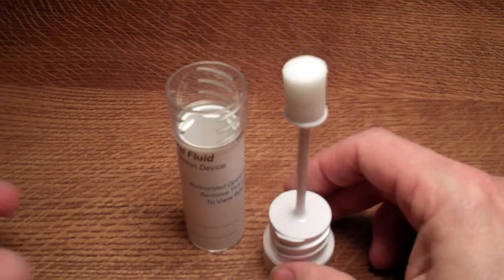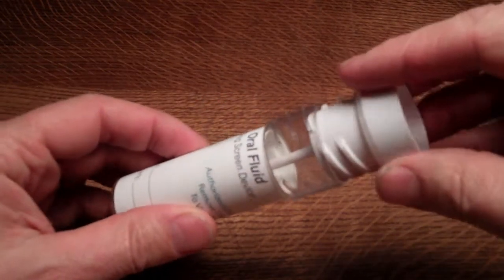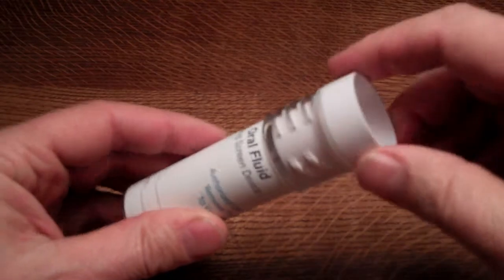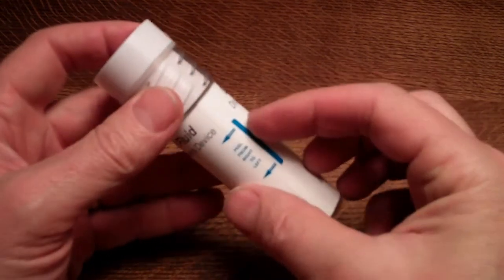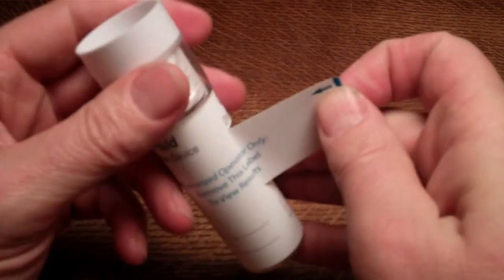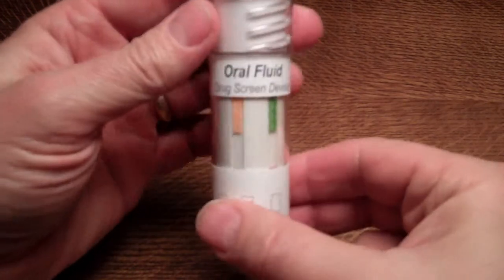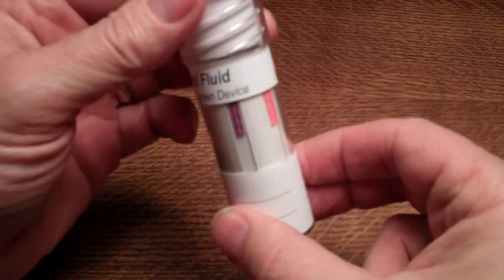To run the test, all that is required is that the swab goes into the body of the test tube, then it locks down — close it nice and firmly. The swab is now completely in the tube, and you peel the label from right to left to reveal the individual tests that are embedded circumferentially around the tube.